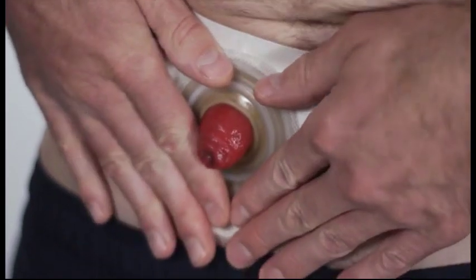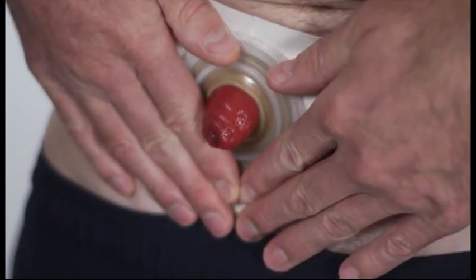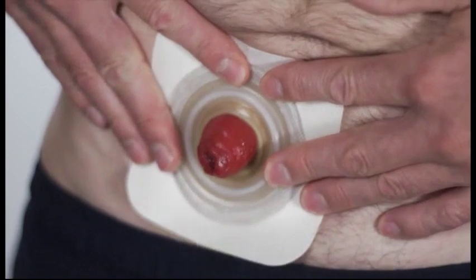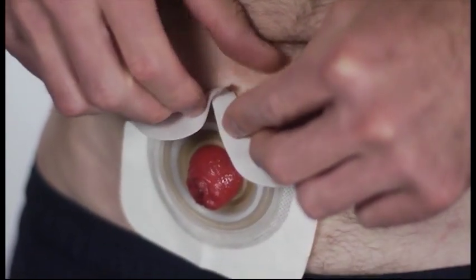Hold the wafer onto your skin with the palm of your hand for 30 seconds. The body heat from your hands helps the wafer stick to your skin. Peel the white release liner from the tape border and press gently against your skin, smoothing out any wrinkles.